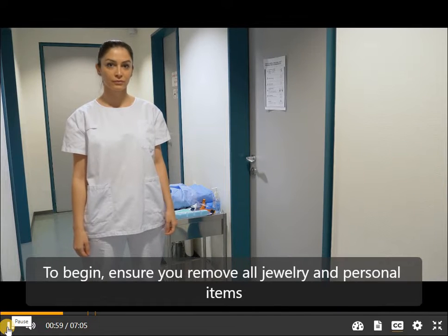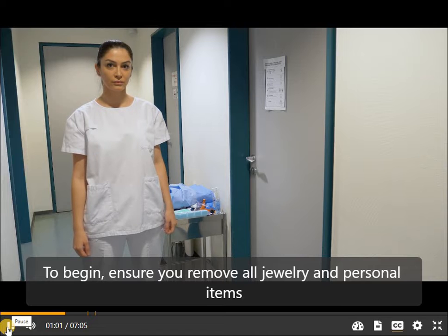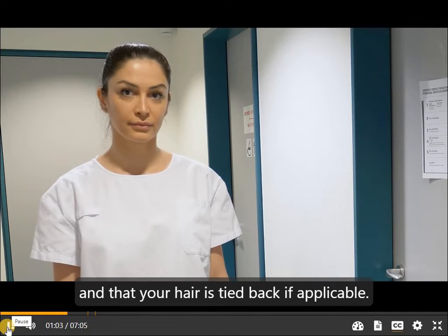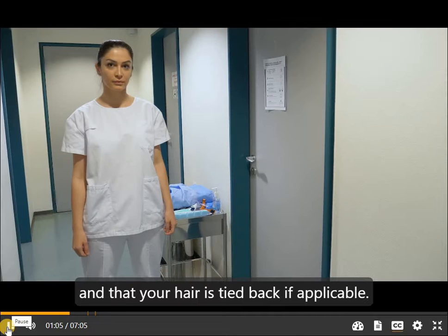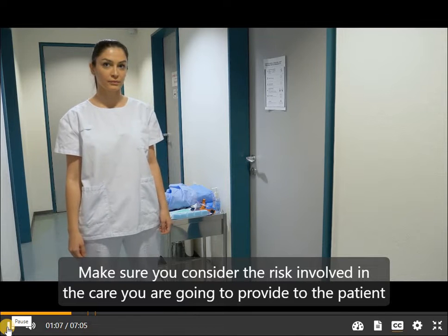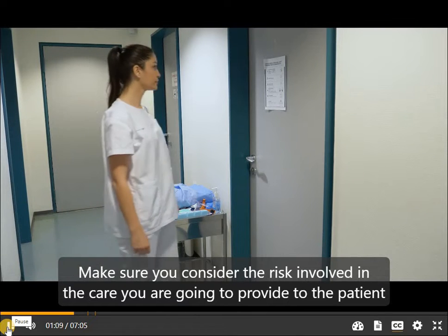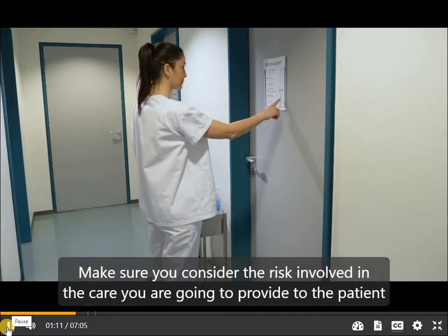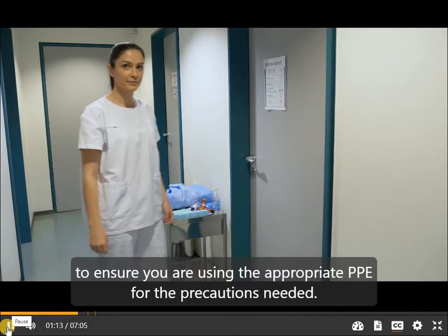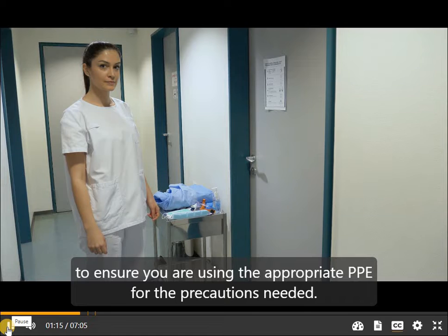To begin, ensure you remove all jewelry and personal items and that your hair is tied back if applicable. Make sure you consider the risk involved in the care you are going to provide to the patient, to ensure you are using the appropriate PPE for the precautions needed.